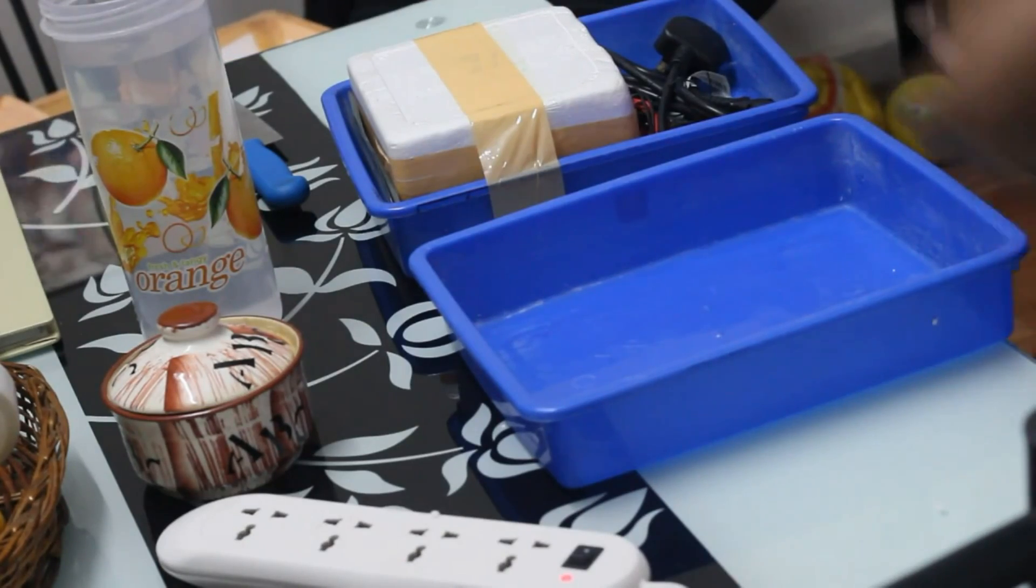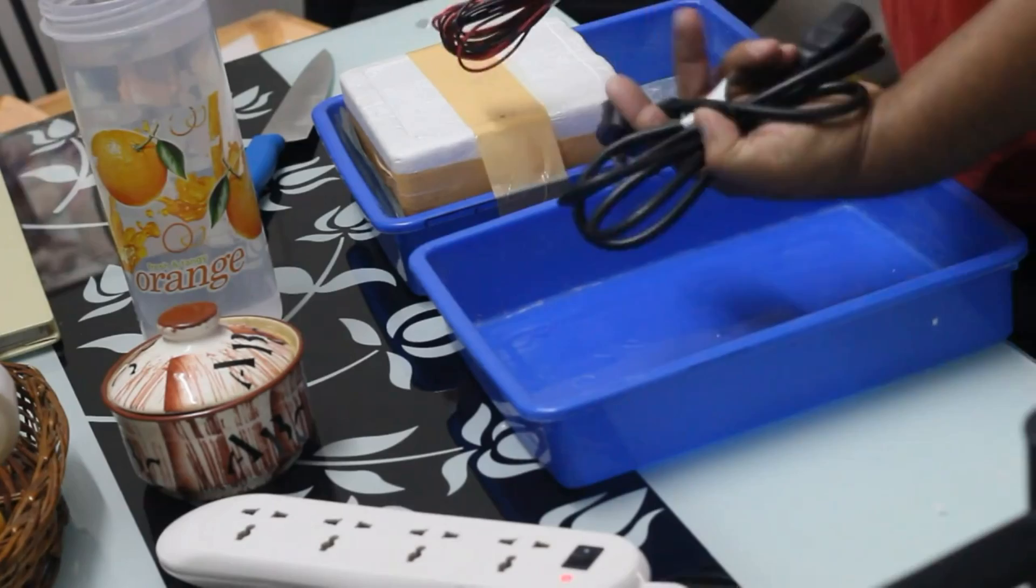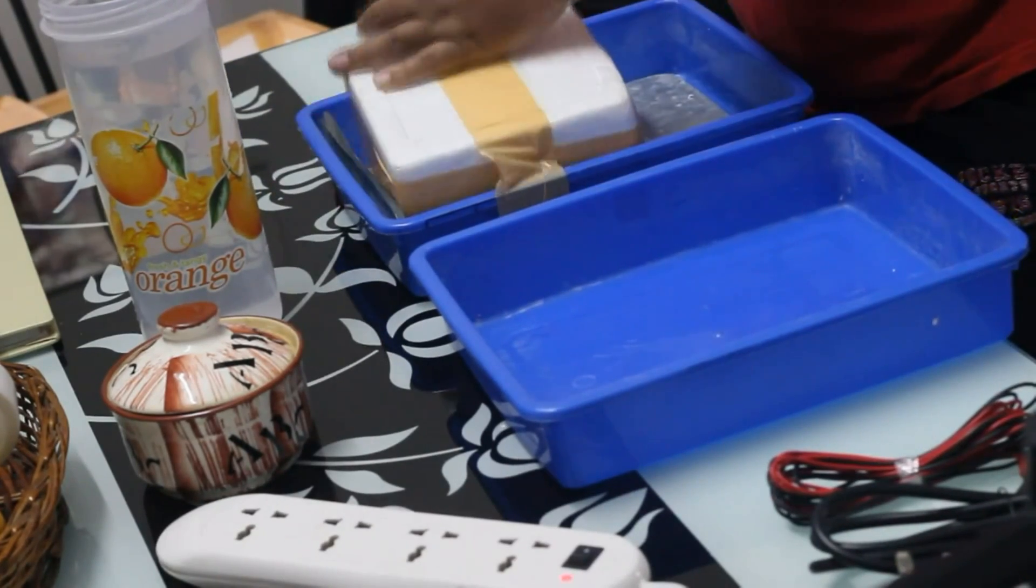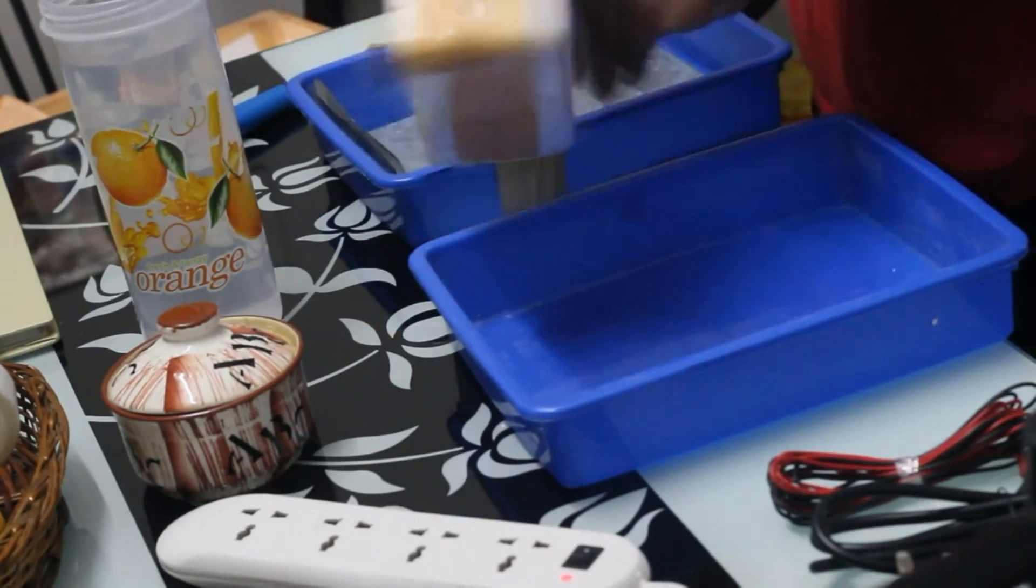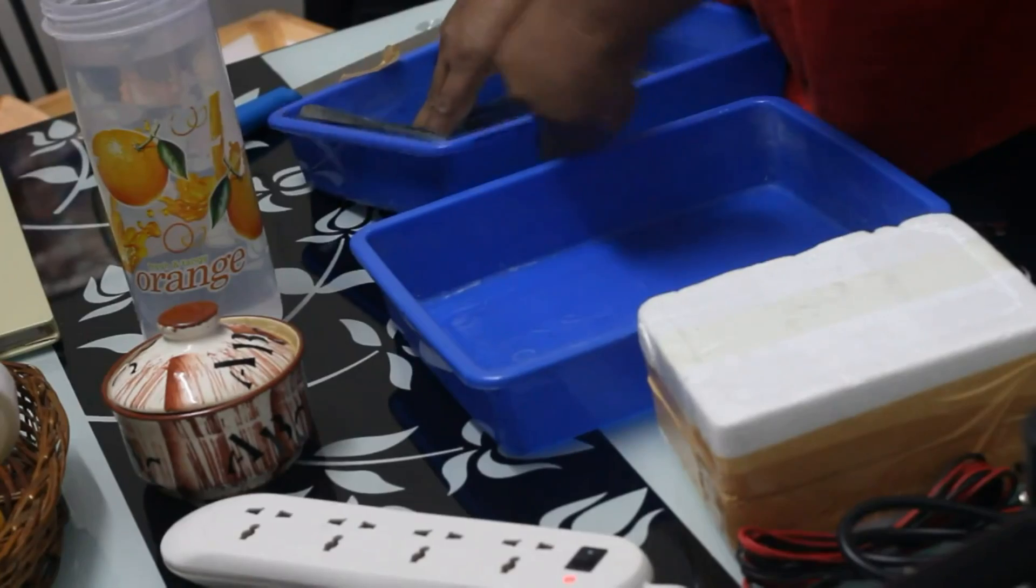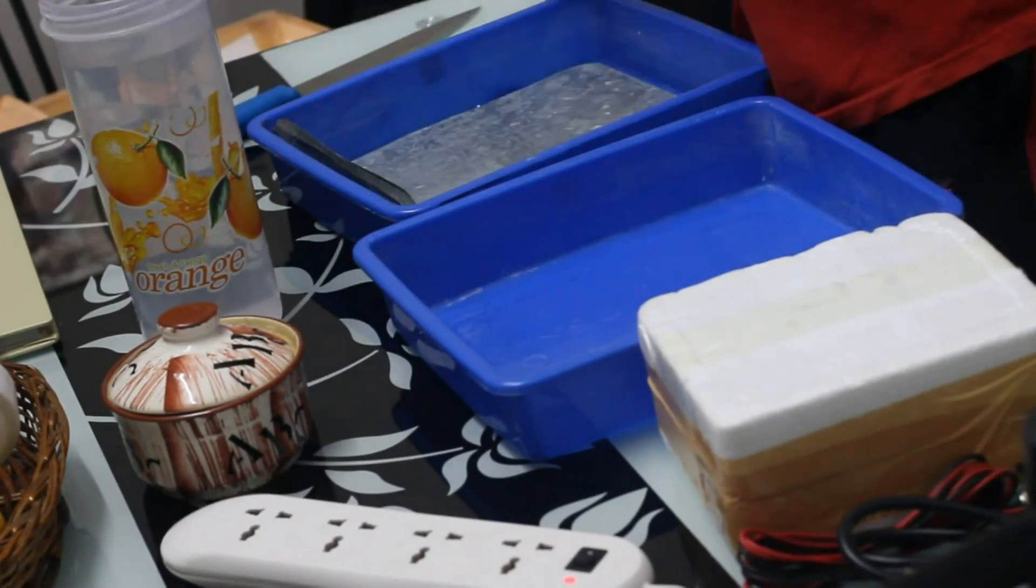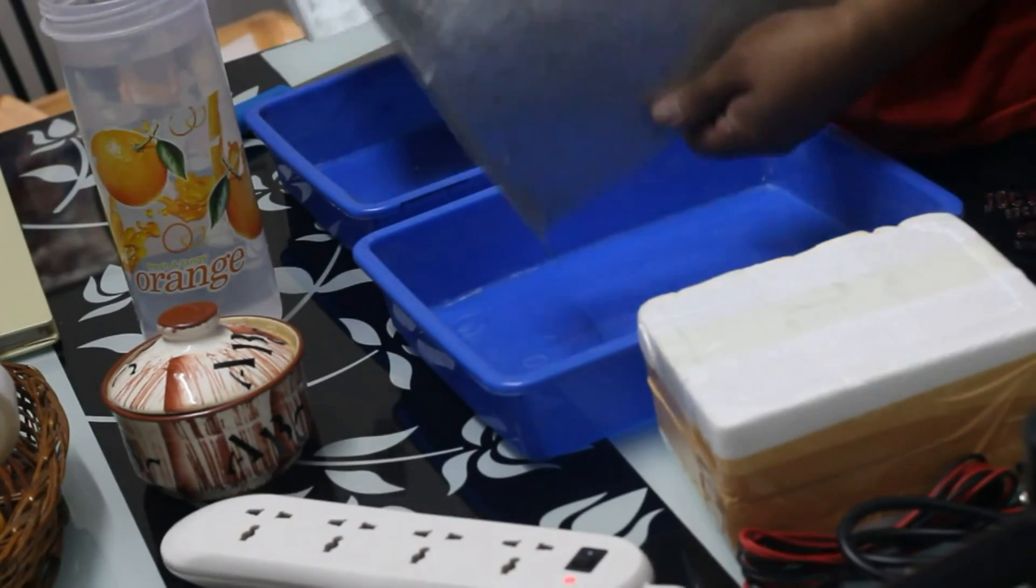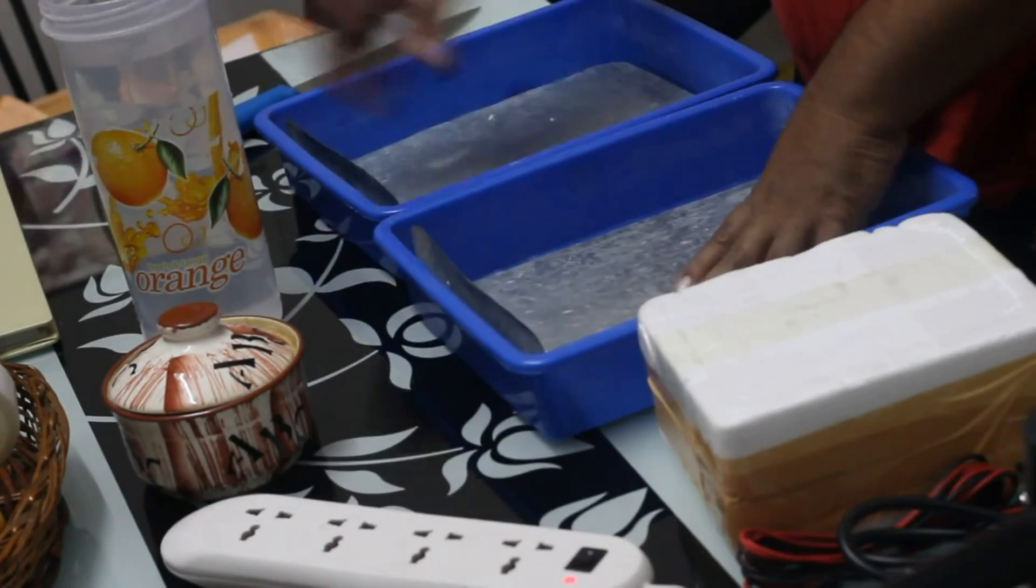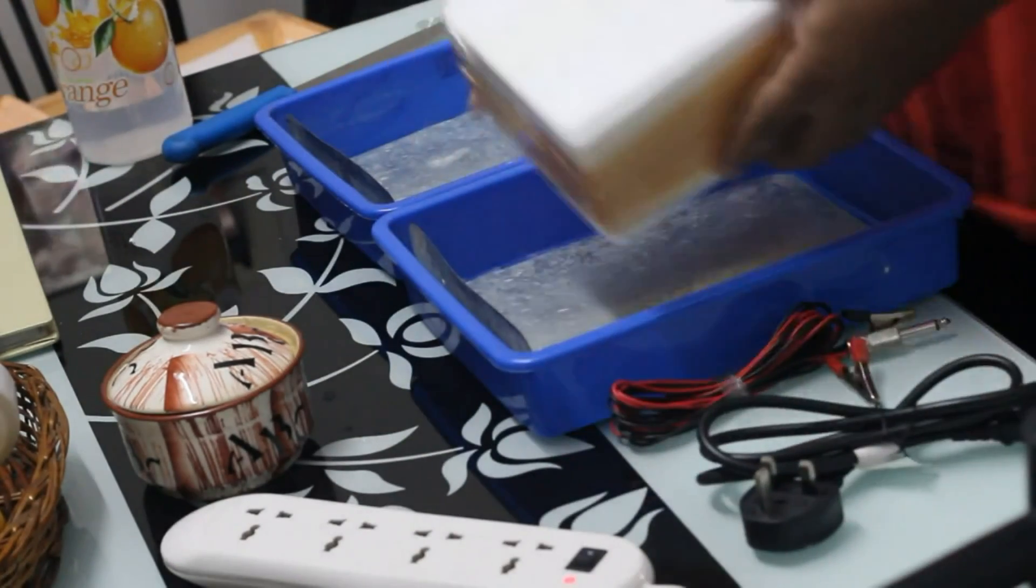Once you open the package, at the bottom tray, you'll find the device packed in thermocol with the power cord and then alligator clips plus and minus, which are in the color of red and black, and then the iontophoresis device. You can remove the straps if those are attached to the trays. With the iontophoresis, you will get steel sheets. There is no extra cost for the tray sheets, alligator clips, or power cord. This is included when you purchase the iontophoresis device.